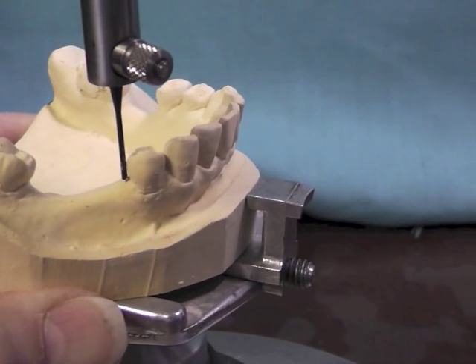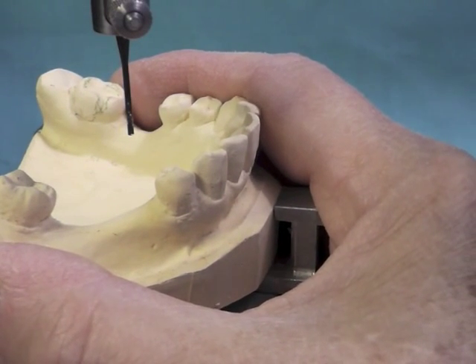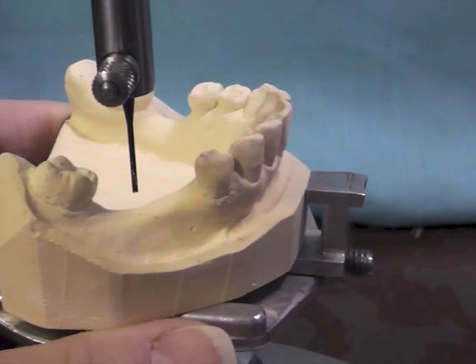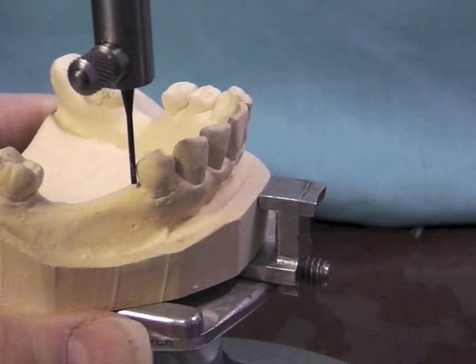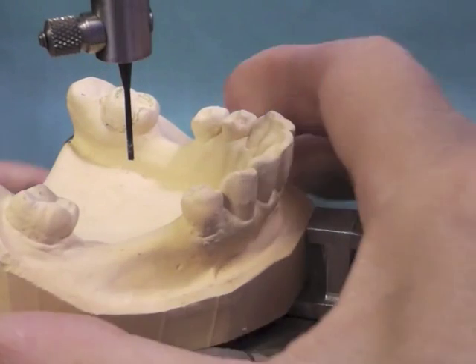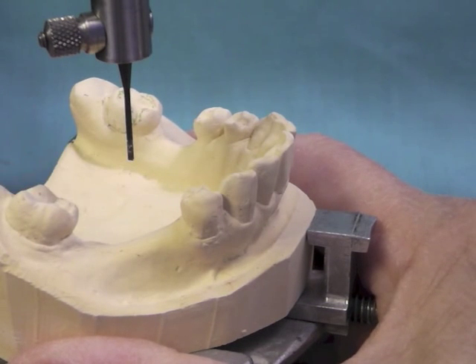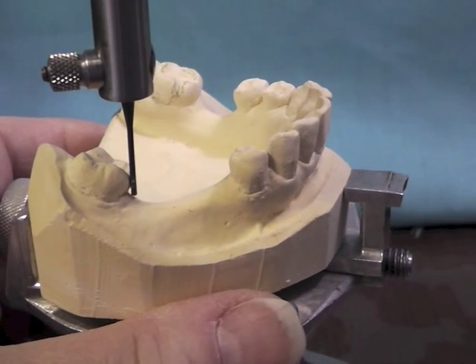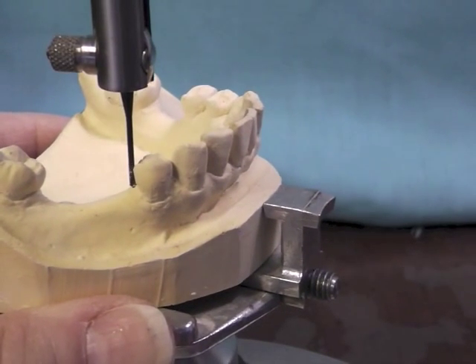My survey line has moved up a little bit. Now I can experiment and do it just a little bit more to where I have to remove less to get the two millimeter guide plane there. And I might have a higher survey line on here, but I still think I'm going to be coming out a lot better off. Now there's a limit as to how much you want to tilt also, because when that partial denture is in final position, it's where the ridges are relatively parallel. And you can affect retention to a point where it's not as good.